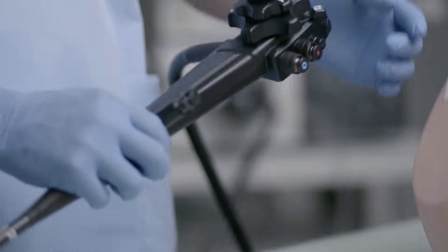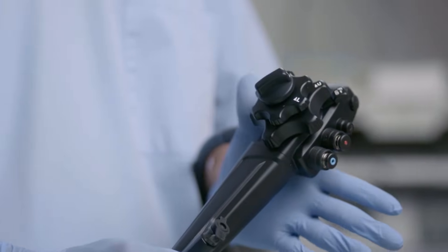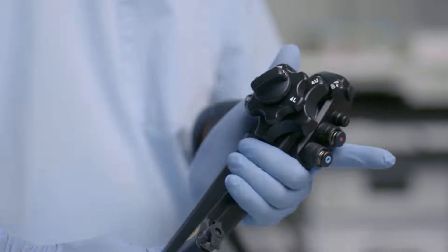Let's repeat the exercise. Grab the control section firmly with your left hand.